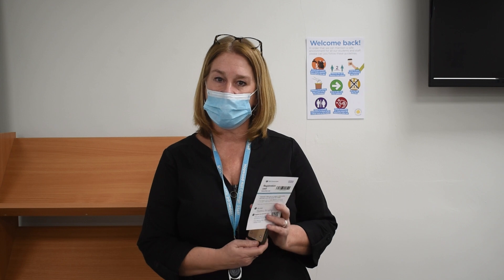So that's the testing process finished. It really was quick and very clear in terms of instructions. I'm now waiting, and in 30 minutes I should get my results uploaded onto the mobile phone that you have indicated you want your results to go to. So that's it.